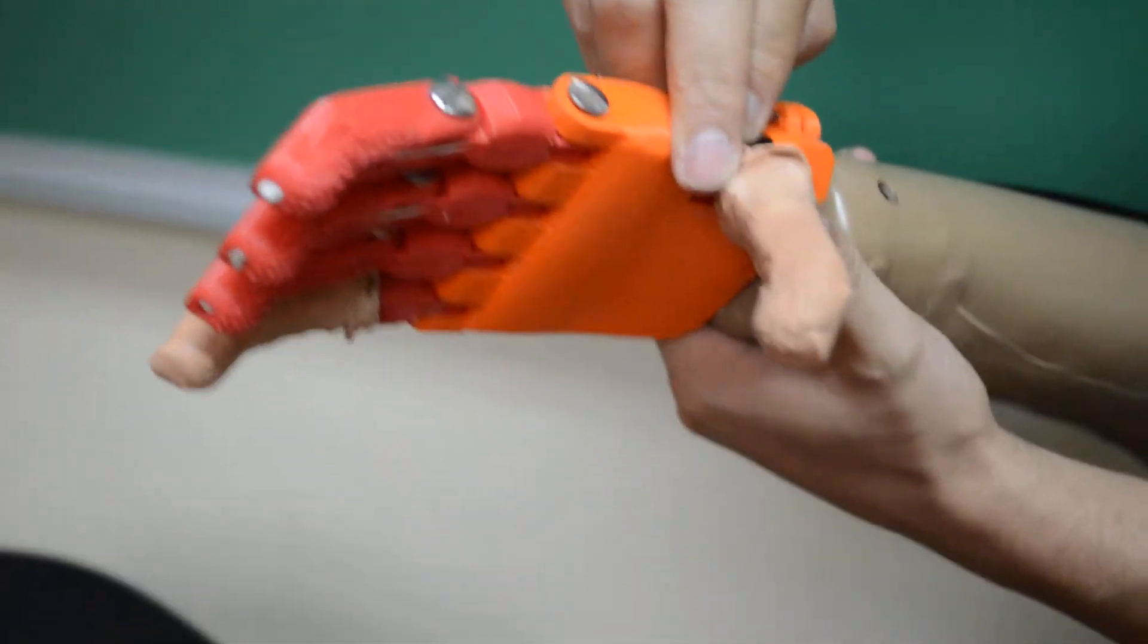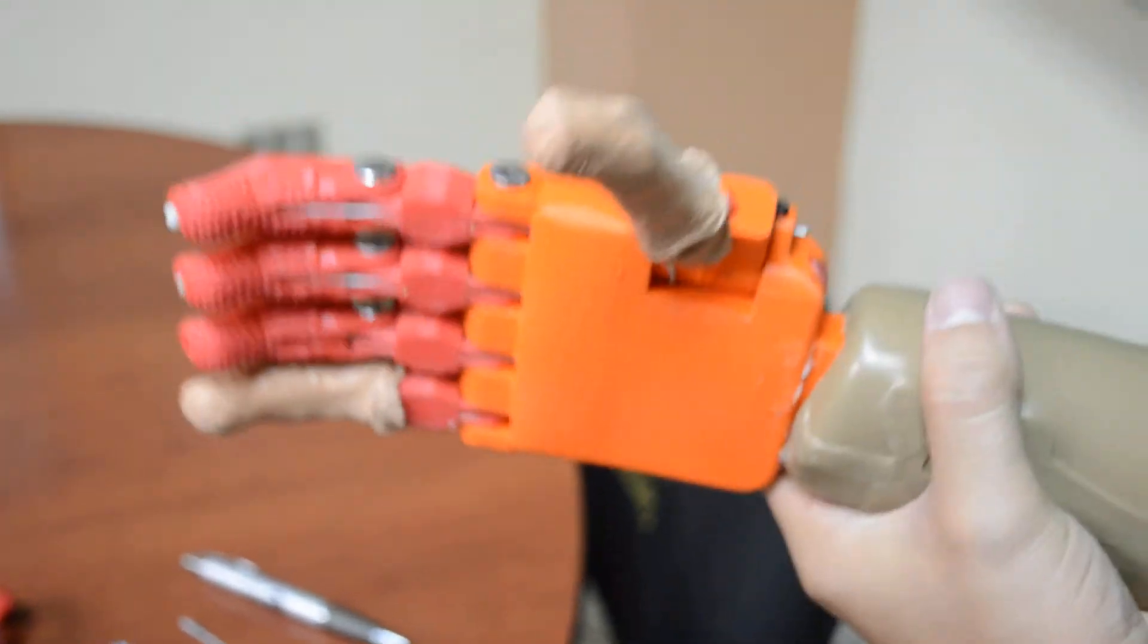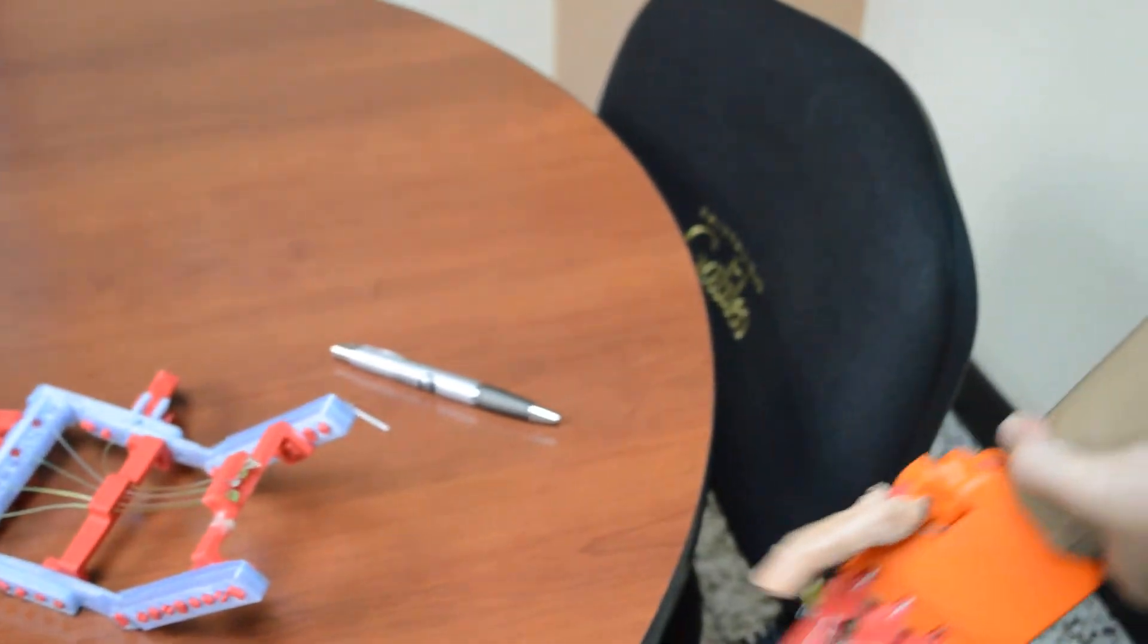I can also, for example, change the thumb position, and here, this allows me to do the hook. So this allows me to carry objects.